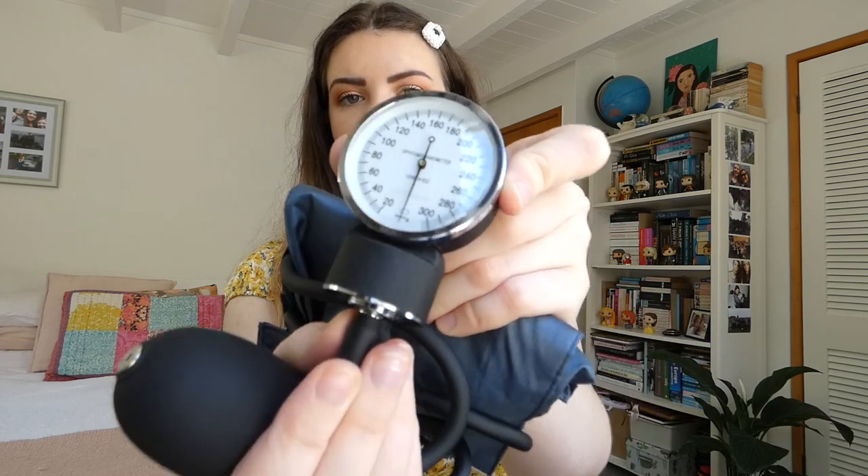The last thing isn't really part of my stethoscope kit, but I just wanted to show it because it is an essential item that I always bring with me to my lab sessions — it's my blood pressure cuff. This was the final piece of equipment that we got in our equipment kits. So obviously just the dial, your pump, and then the cuff itself.